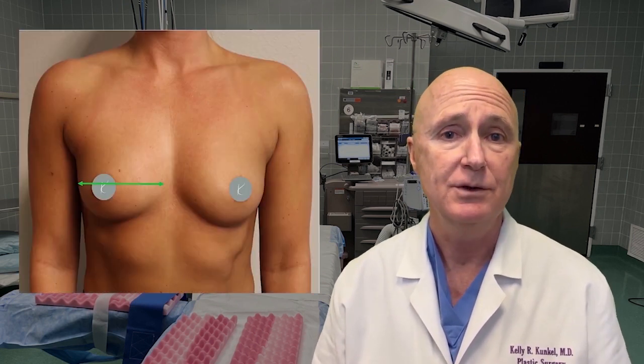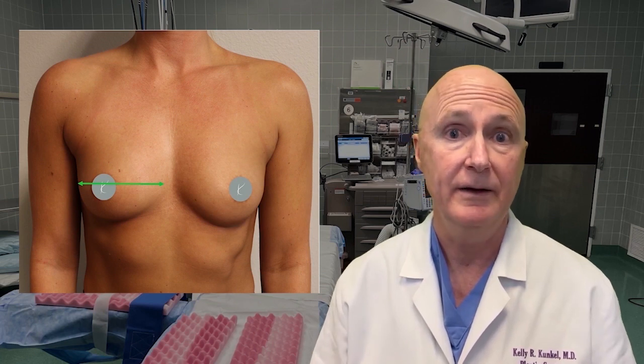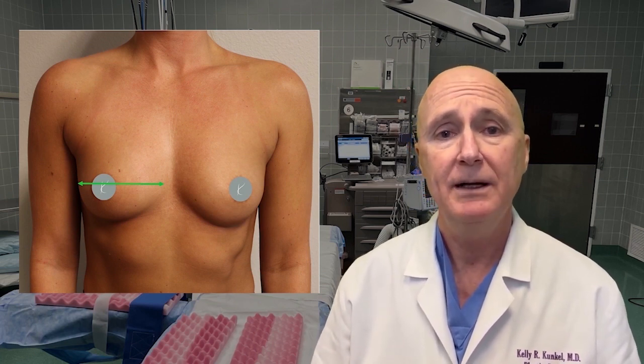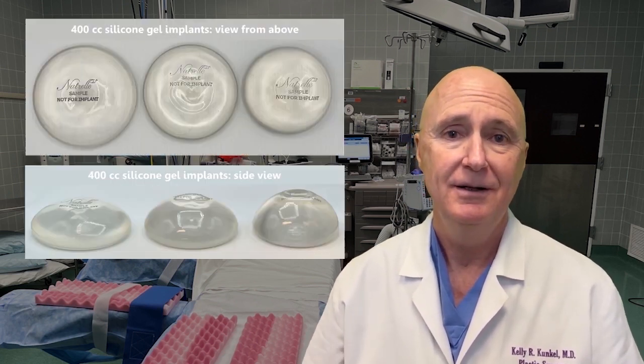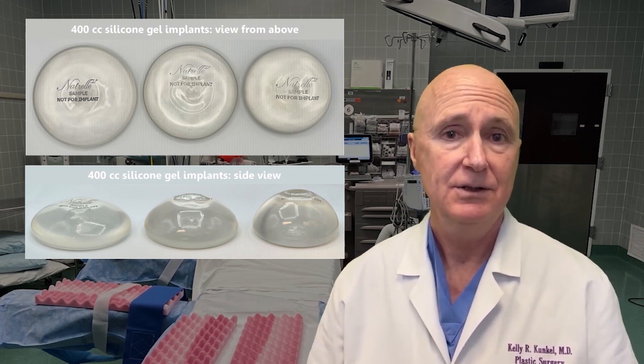How do we decide? Typically, it starts with a measurement. Typically, we measure about how wide the breast is. We call that the footprint of the breast. And in most cases, we want to pick an implant that's about as wide as the breast is. So suppose a woman came in to me and said, I want a 400cc breast implant. Well, she'd get a different look depending on which of these profiles she chose.